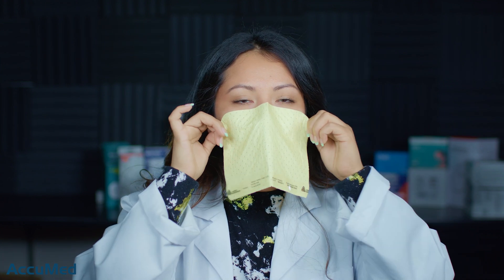This is my first time trying something like this, so I do find it very odd. Let's go ahead and try taking them off and putting them back on several times to see if you're able to achieve the same seal multiple times, because obviously you're going to take the mask off several times throughout the day to eat or do other things. Let's do it once, twice, three times, and one last time.